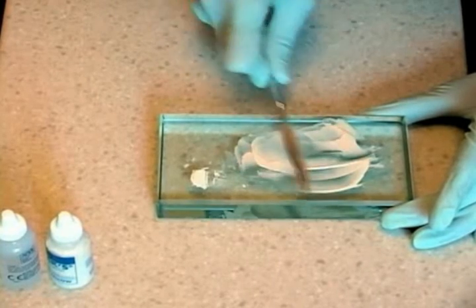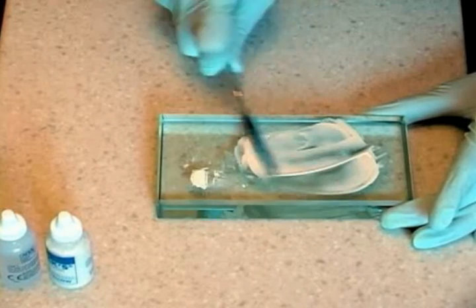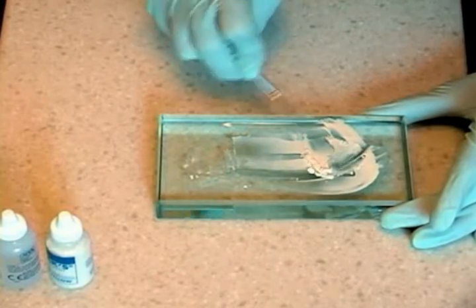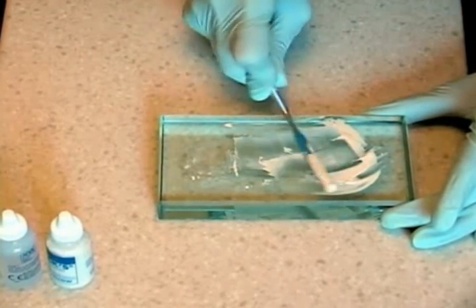Once the mixing is complete, gather the cement into one area and use immediately. The mix should be creamy and as the spatula is lifted off the slab, the cement should follow the spatula for about one-half inch before breaking.